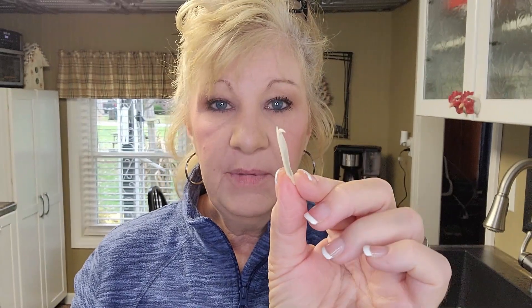It's snugged up my denture quite a bit — that little thickness right there made it a little bit snugger. Let's try it. I'm gonna eat and drink and I'll be back. Okay, it's like five o'clock.